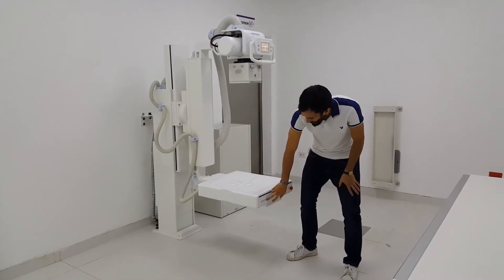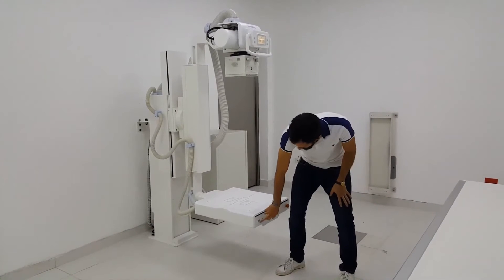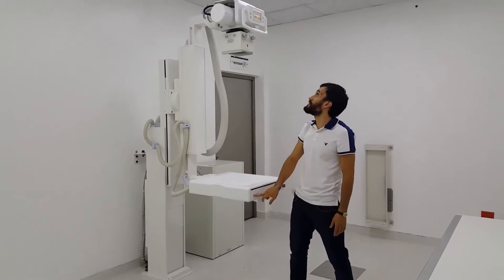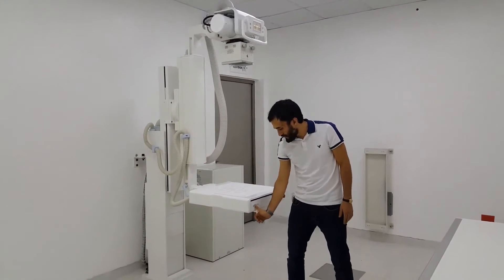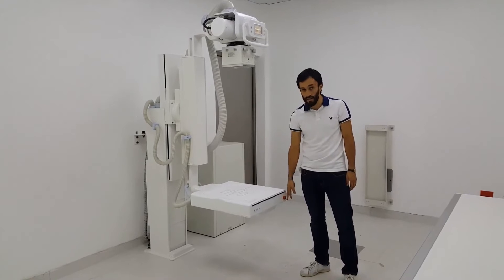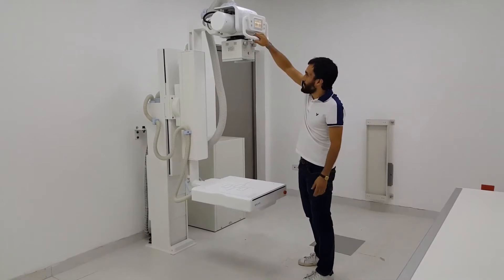You can also move the whole system up or down. There is an emergency brake here — if you click it, the whole system will stop moving.